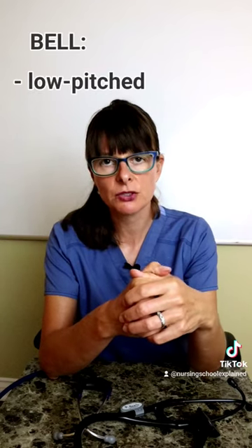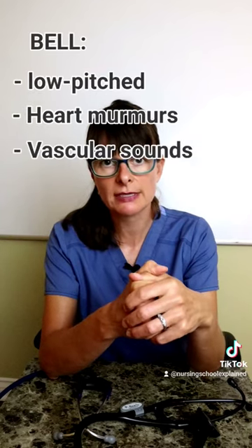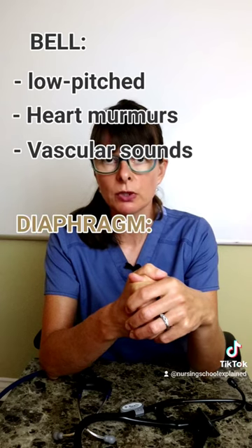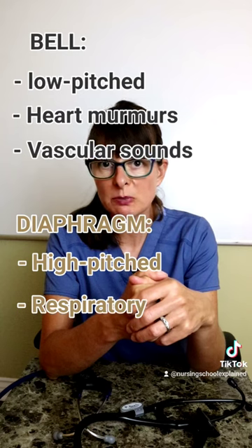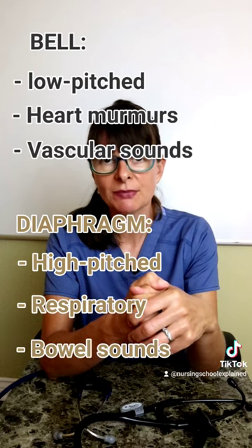Keep in mind that we use the bell for low frequency sounds such as heart murmurs as well as vascular sounds, and the diaphragm of the stethoscope to listen to more high-pitched sounds such as respiratory and bowel sounds.